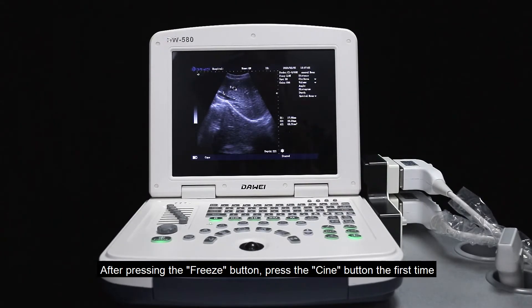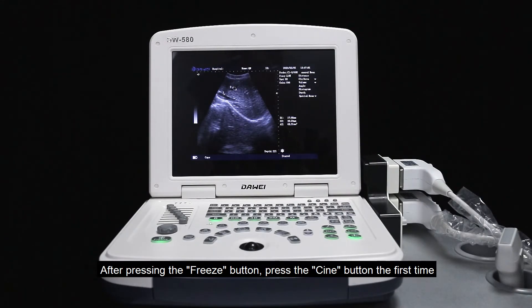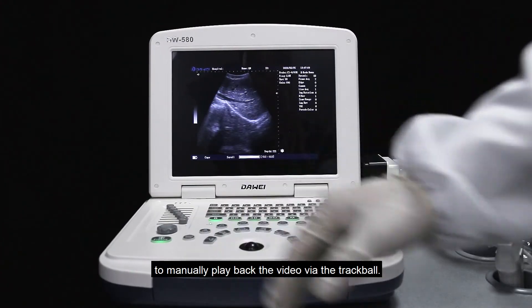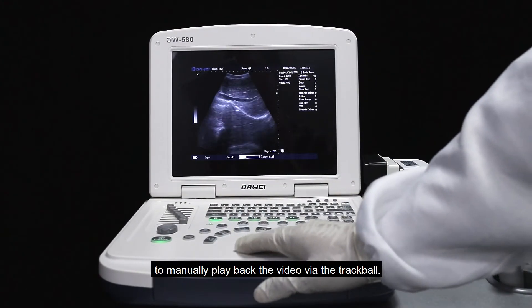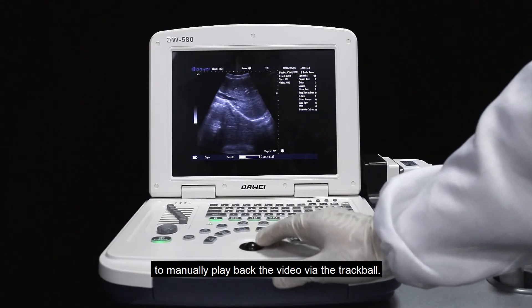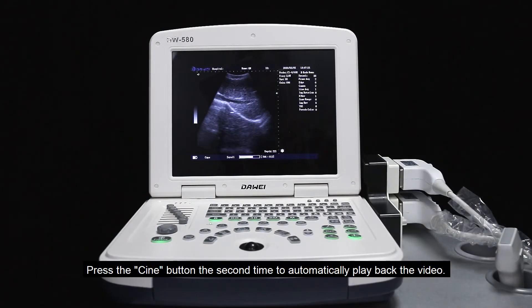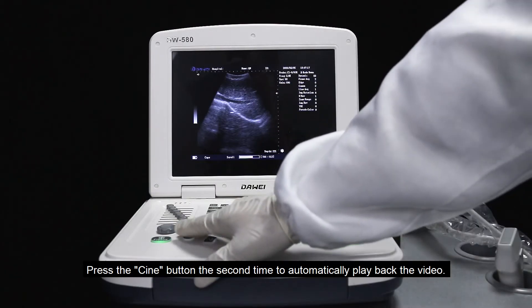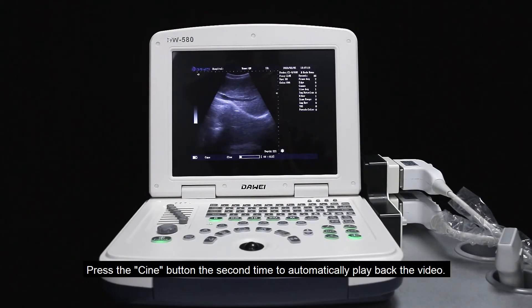After pressing the freeze button, press the cine button the first time to manually playback the video via the trackball. Press the cine button a second time to automatically playback the video.